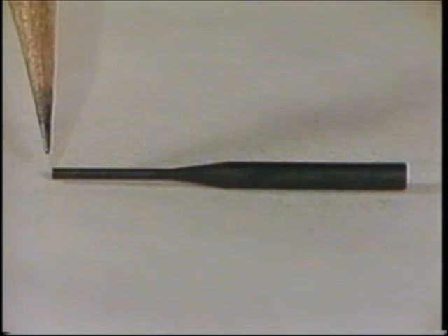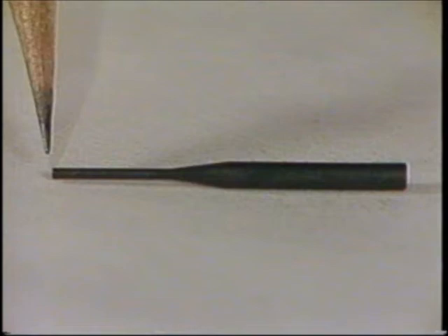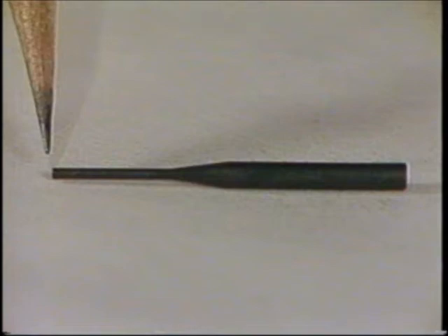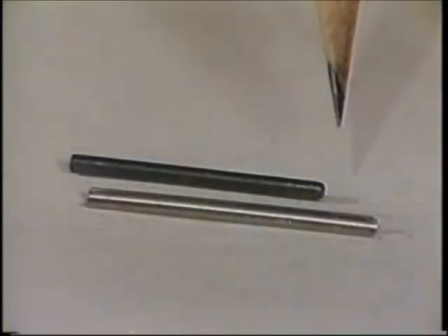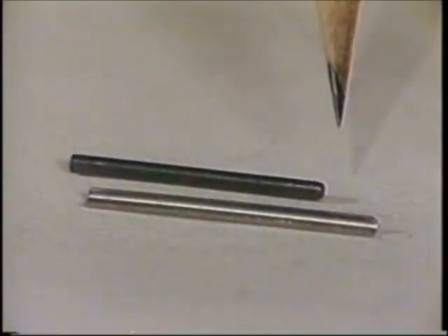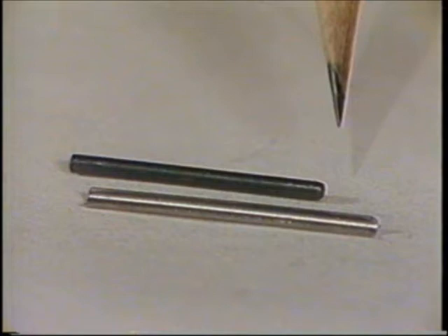It is important to check the roundness of the analyzing rod prior to its use as it is easily damaged. The graphite marker is used to delineate the survey line which defines the height of contour at a given path. Replace the marker if it is worn. Rotating the marker in use will extend its service life. Use the metal sheath to prevent fracture of the delicate graphite in use.